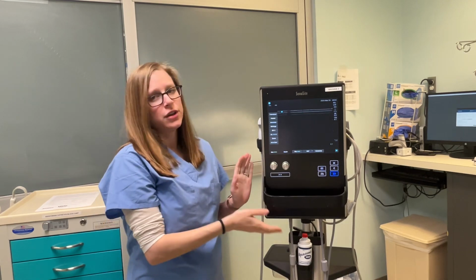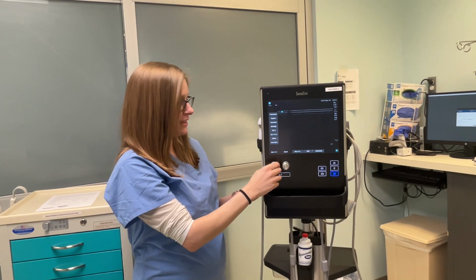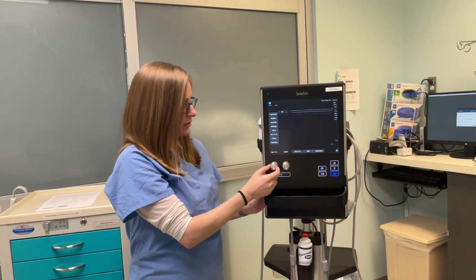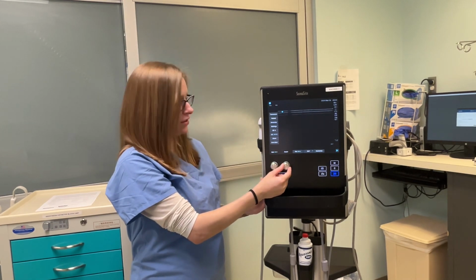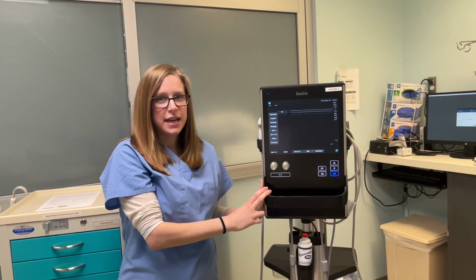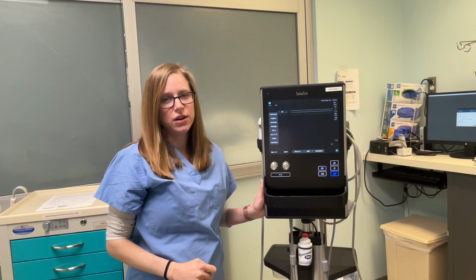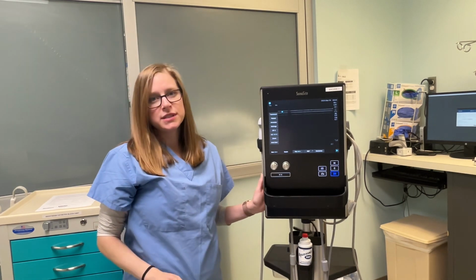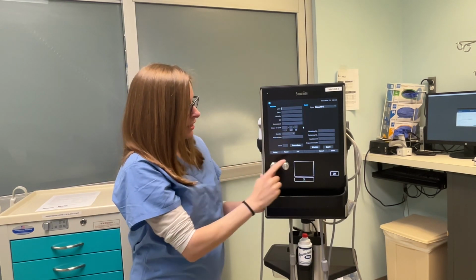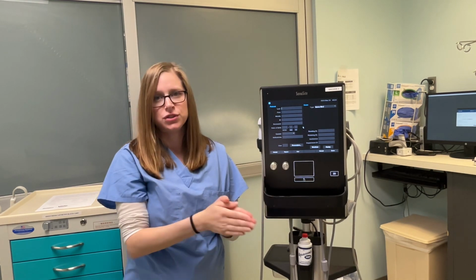Other features on here that you'll be asked by the anesthesiologist to perform are increasing or decreasing the gain and the depth. And these knobs are labeled here on the ultrasound machine. Gain on the left and on the right is depth. During the procedure, anesthesia may also ask you to take a picture, and for that you will press the camera button located on the screen here. When the procedure is all finished, you're going to go back to patient information, click end, then done. This will then send all of the information to the computer system.